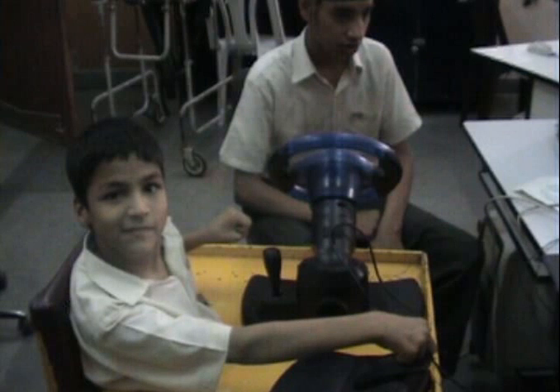Okay, we are now looking at ways of making the software smarter. How can Arpit type faster? How can he do other things like mail or chat or web browsing and so on.